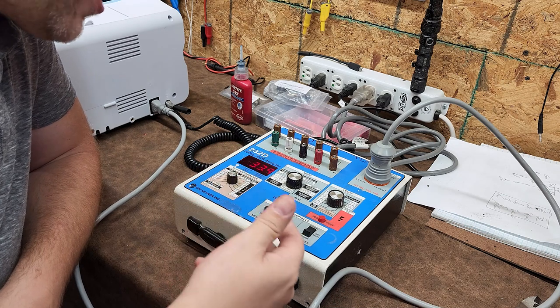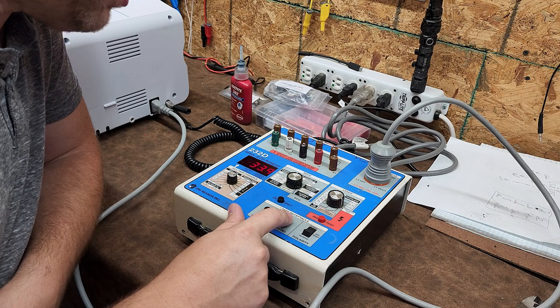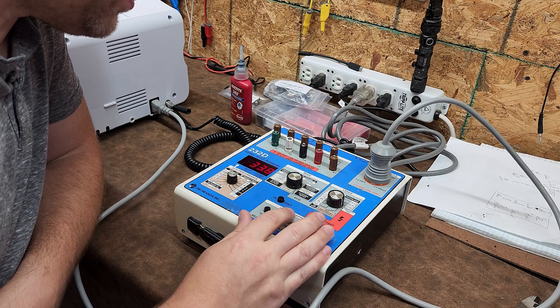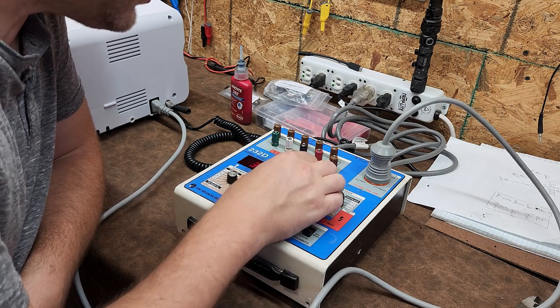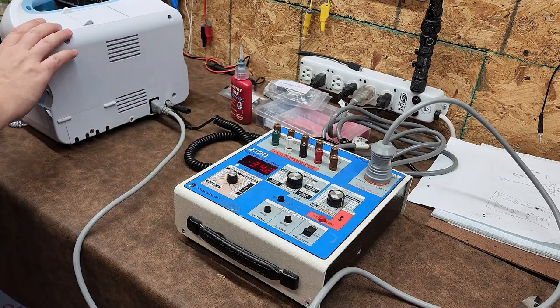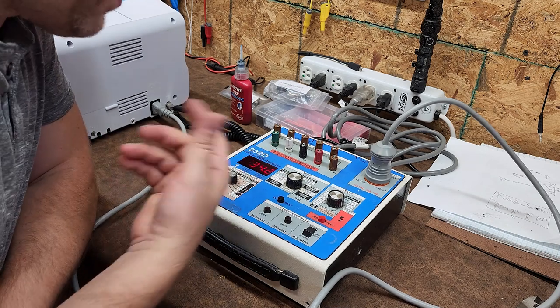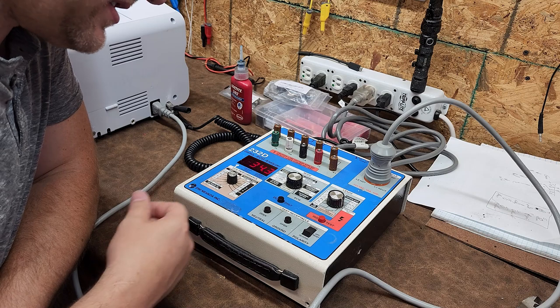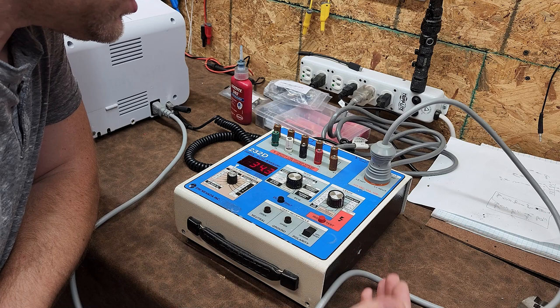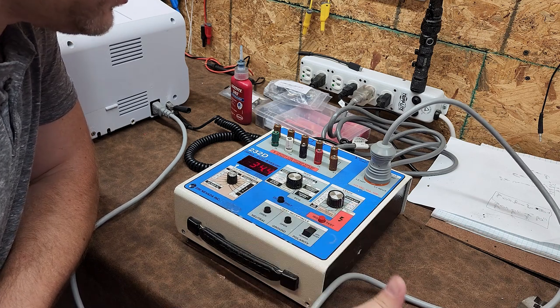The device under test is off — external case leakage, open ground, normal polarity — no change. Ground conductor — no change; of course it's off. Let's go ahead and turn on the device. It should go up now because your battery charging circuit is now active. Open ground — looks like we're doing okay. This meter, so far, looks like it's doing really good.